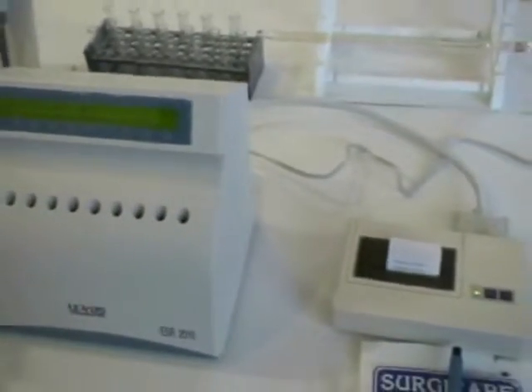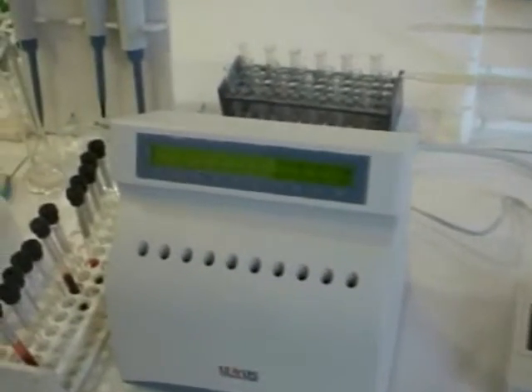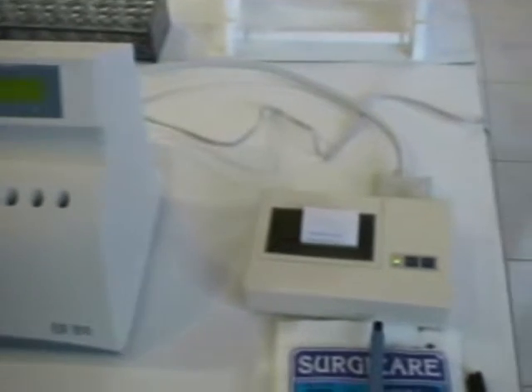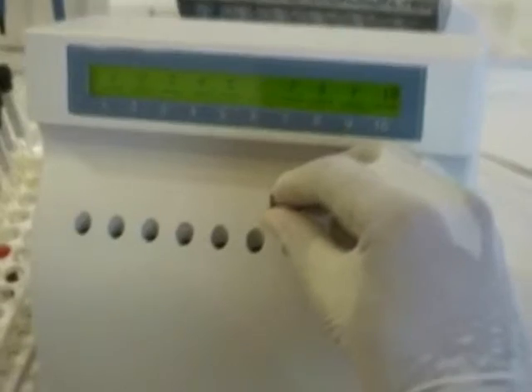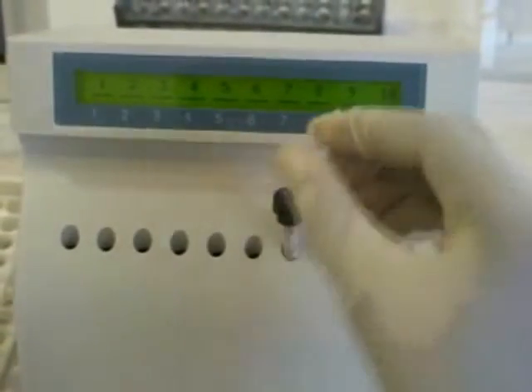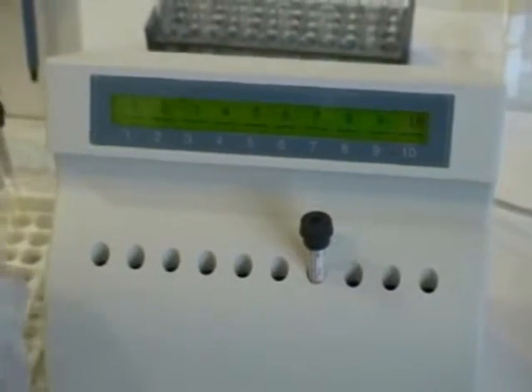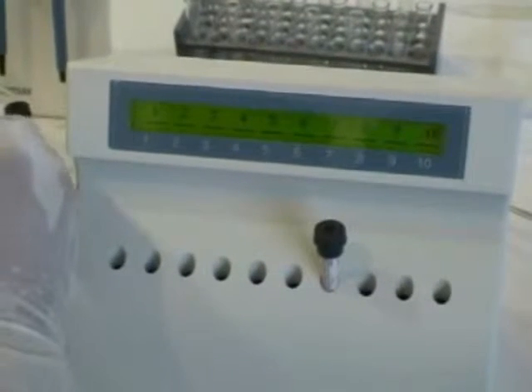The initial display on the LCD shows the brand name and the company name. The real time laboratory temperature is also displayed. The printer, if connected to the analyzer, performs an automated test print. Do not connect the printer if you don't intend to print the results.